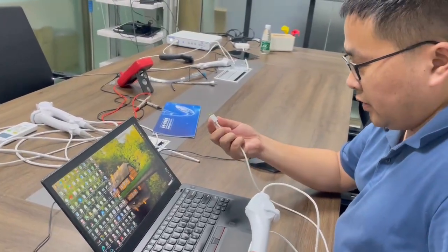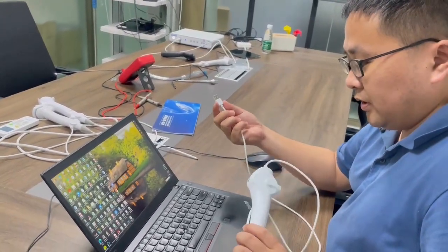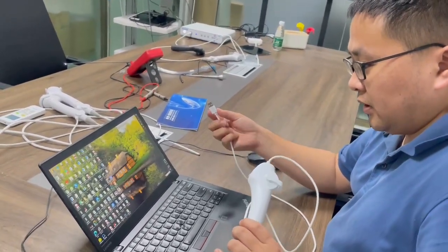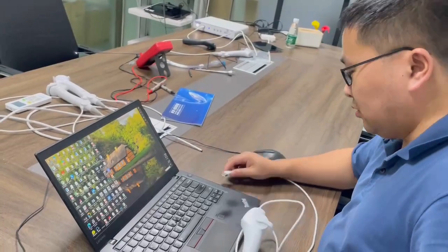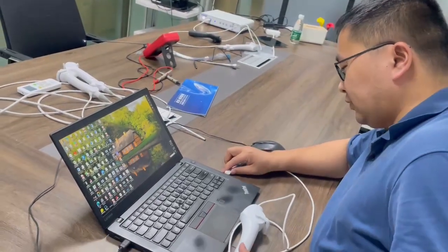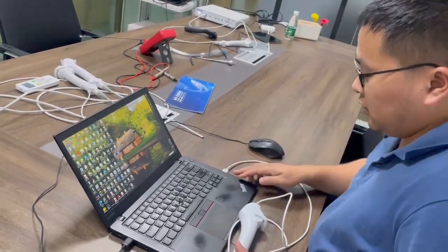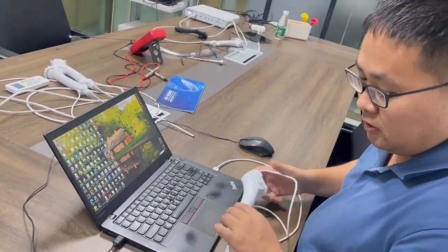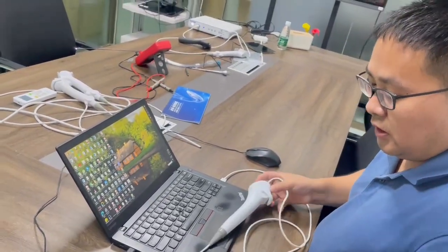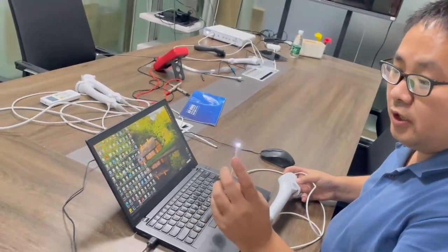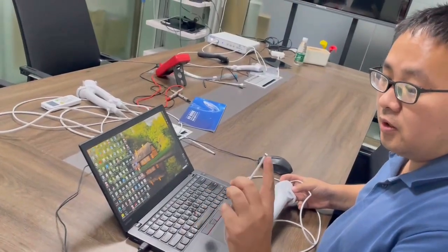How we use the USB endoscope to connect to the computer. You can see, insert it into the port and the LED will be on.